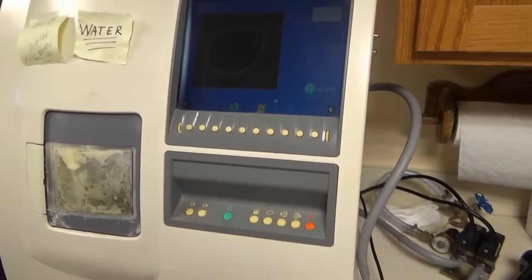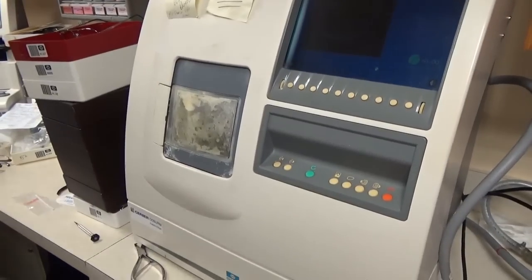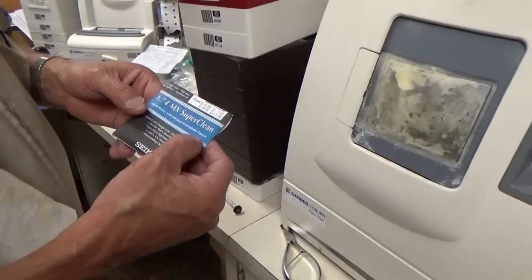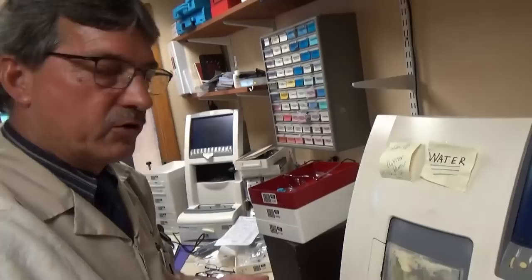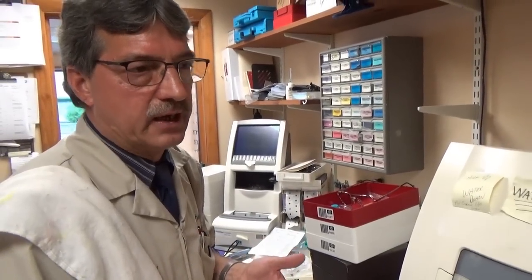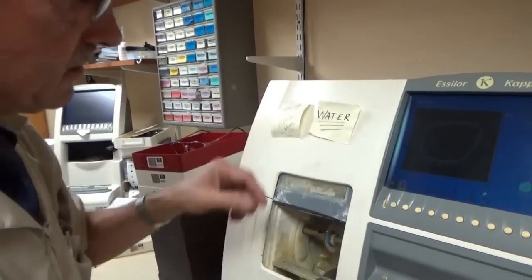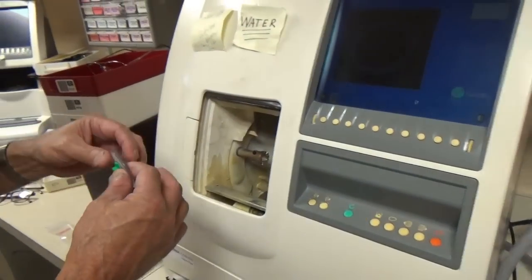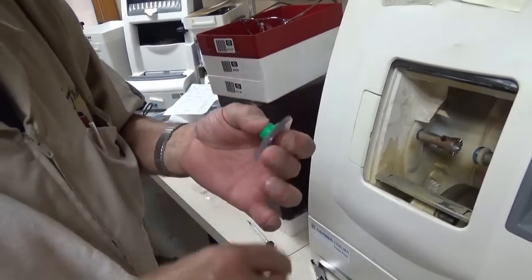You can smell it cutting. This is a high-index material and it does stink. This is actually the thinnest lens — a 1.74 index. The plastic lens is about 1.52 to 1.53; polycarbonate is 1.59; mid-index is 1.54; 1.60; 1.67; and 1.74 is the thinnest you can get right now. This prescription 30 years ago would have been twice as thick. That's as thin as they have ever been.